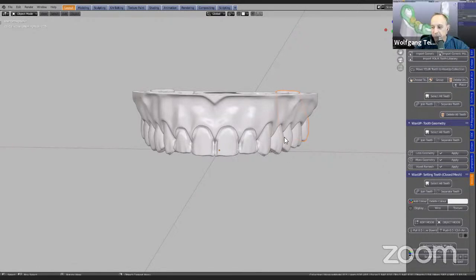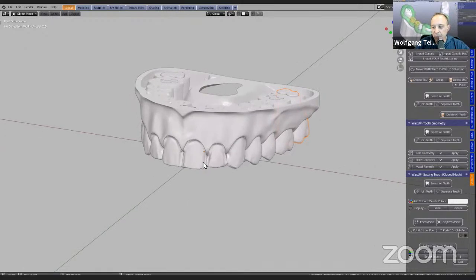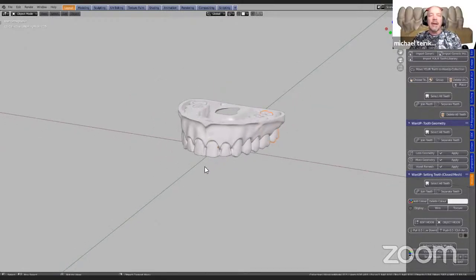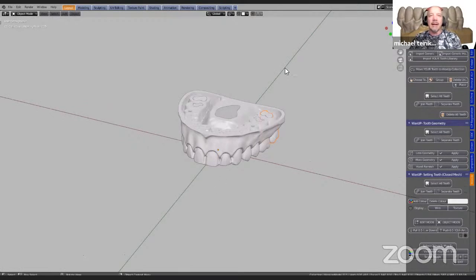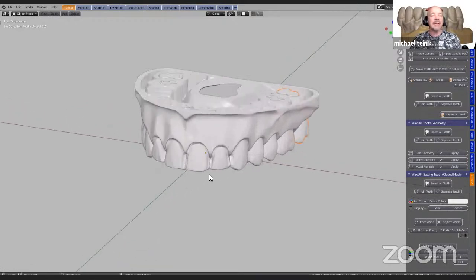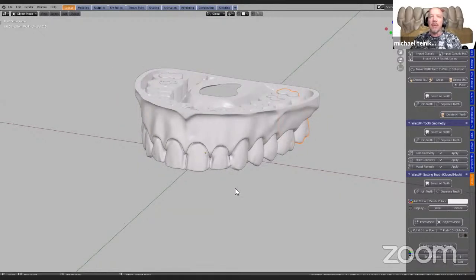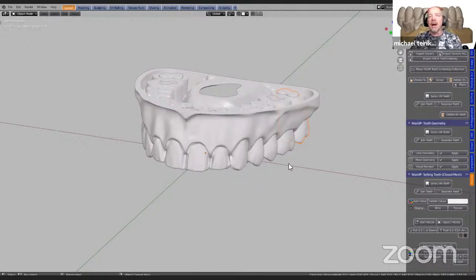This is the work scene in Blender and you will see a red line and a green line. This actually means that the model is in the center of the Blender workspace. This is very important when we first start with our modules. In our model designer add-on, we have a tool which aligns these models to the center.